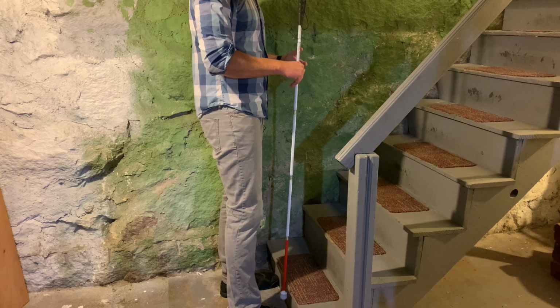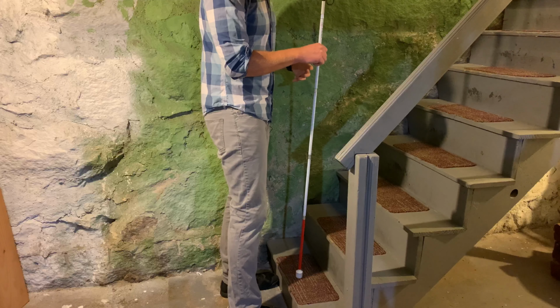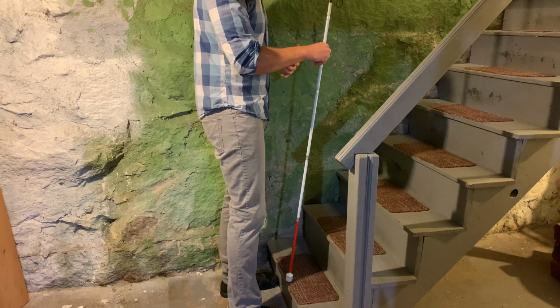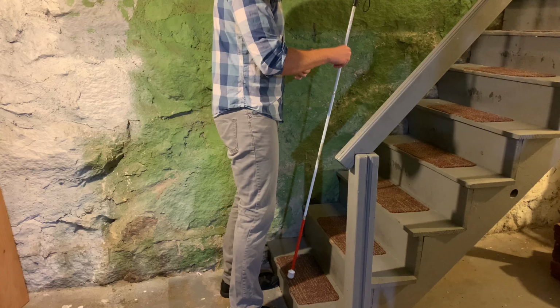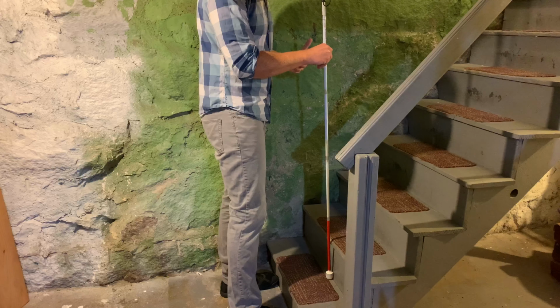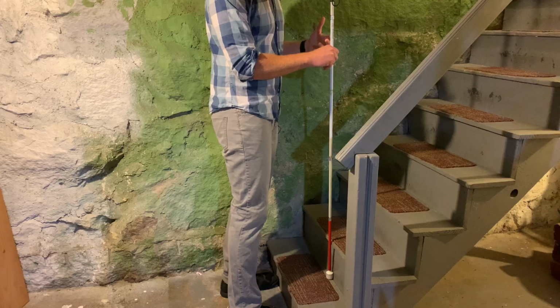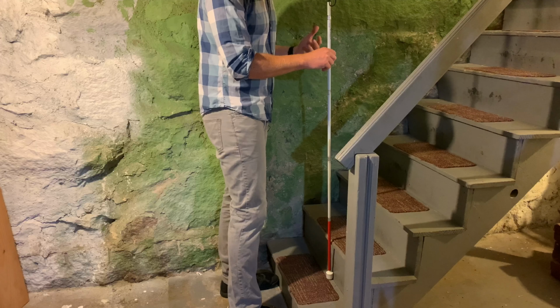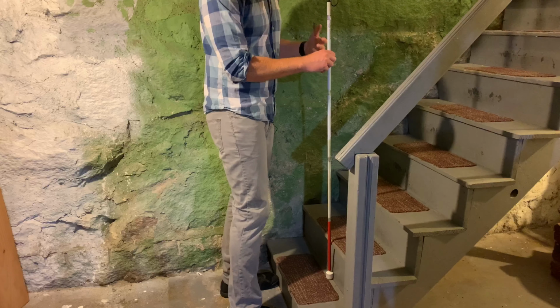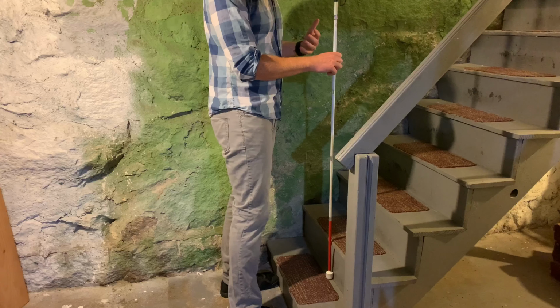It's still vertical until it comes over the top of the lip of that first step. Now I have an idea of how high the stair is. And then if I keep continuing, but rest the cane tip on that first step and bring it until it comes in contact with the second step, I have an idea of how wide, or the depth, of that first stair. And once you have the first stair, you can kind of infer that the rest of the steps are going to be the same or very similar. That's not always the case, but at least you'll have an idea of how high and how far you should step.